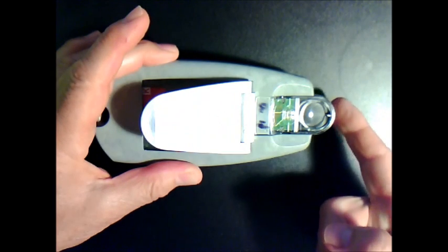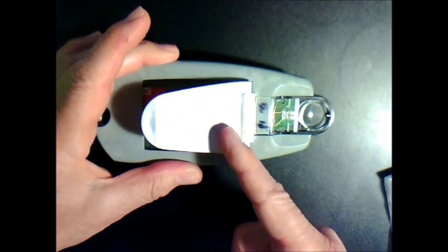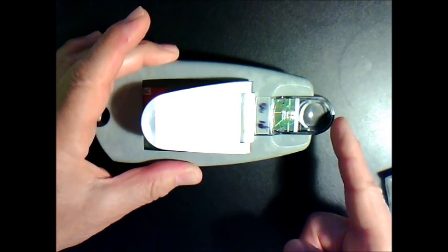Then the display will light up and indicate that either all is well or it will show you what is wrong. If all is well, lift the flap again, remove the cover of the cartridge, and inside the well place a drop of calibrating liquid.